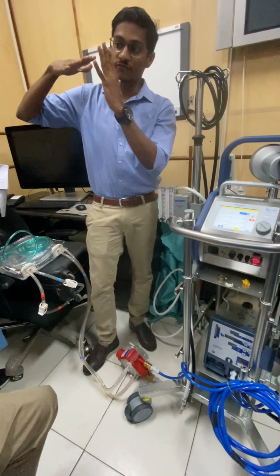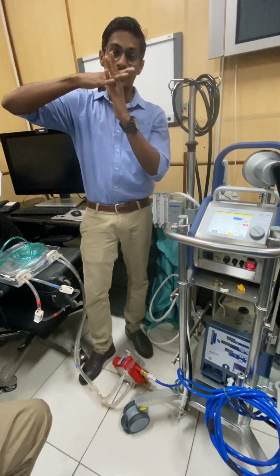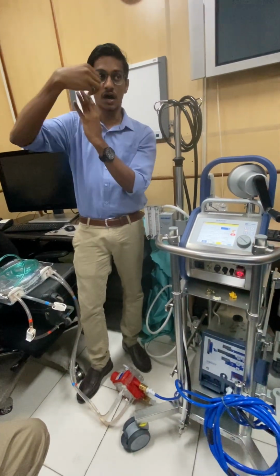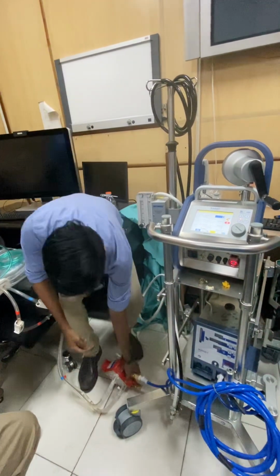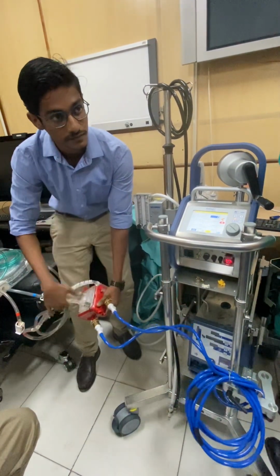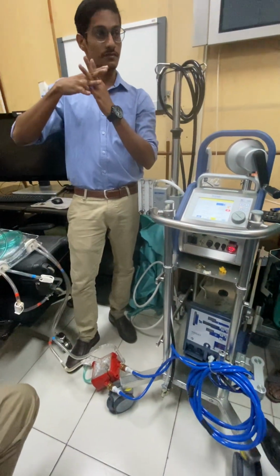Now there is another fiber known as polyurethane fibers. In these polyurethane fibers, on one side the water comes, water goes inside the fibers, and outside it goes into the machine. So water is coming in, into the fiber it goes, and the outlet of the fiber goes out. उसका ऑक्सीजनेशन से कुछ लेना देना नहीं है. सिंपल मोटी बात होगी. सिर्फ वार्म करने के लिए एक अलग मैकेनिज्म है. Okay.